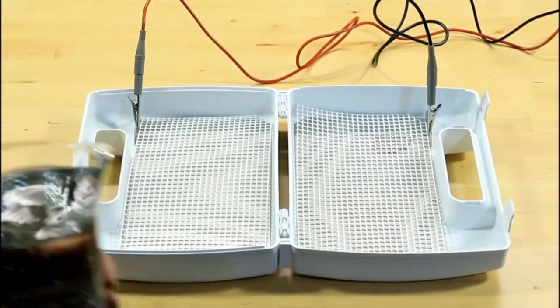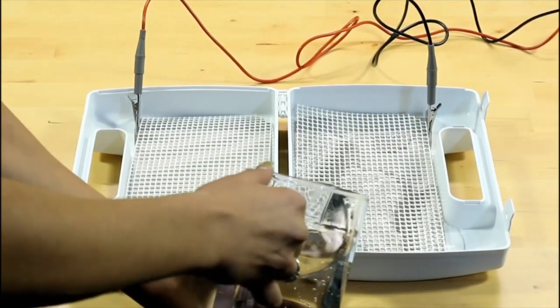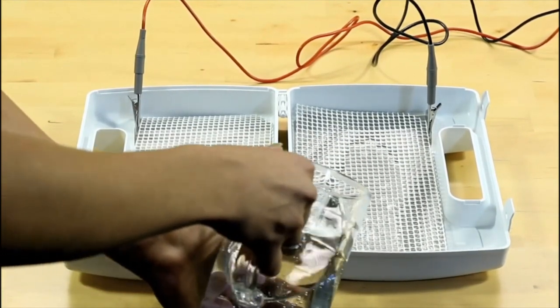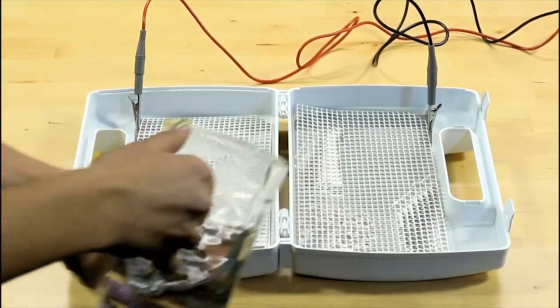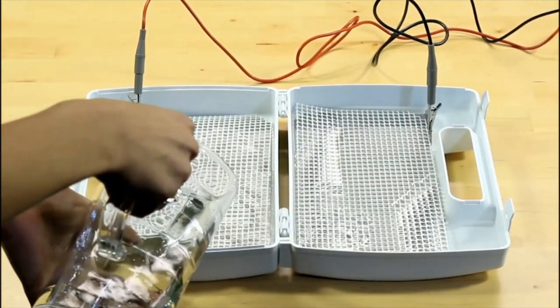For carrying out the therapies, you need, if possible, warm tap water which is poured into prepared containers. These containers are included together with other accessories in the basic package of Electro Antiperspirant and serve to treat feet or palms.